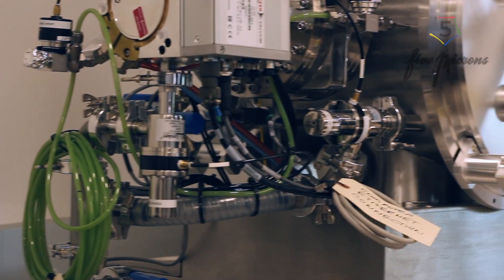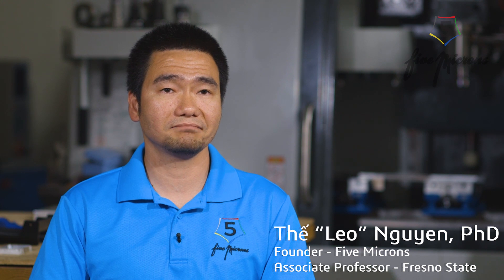We introduce the Tremelo. My research background is actually vibration control from my graduate school, and noticing the people with tremor from my childhood until now, I'm seeing the analogy between vibration in machinery and tremor in human.